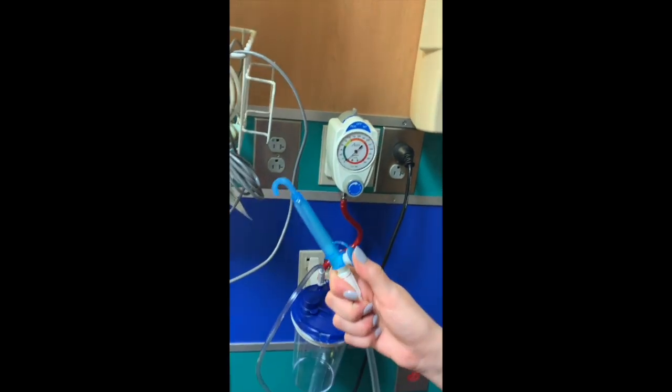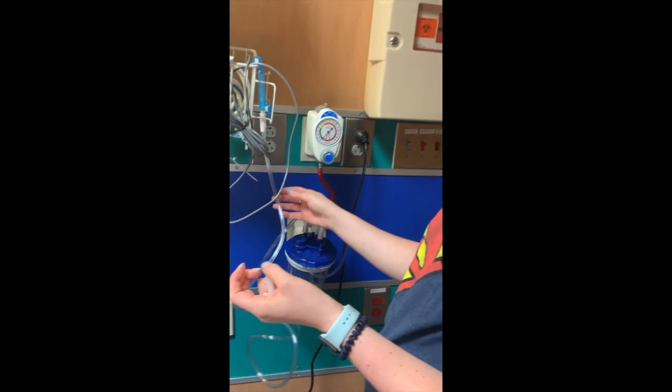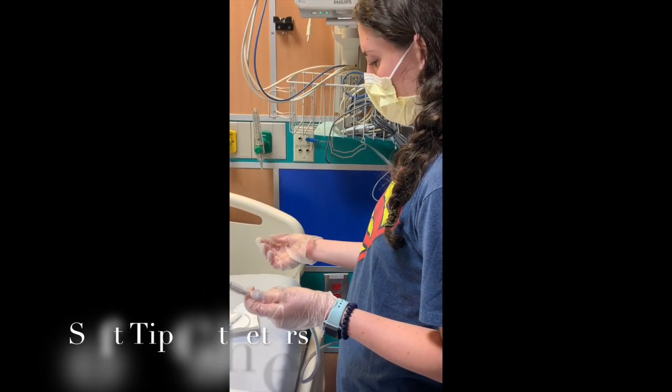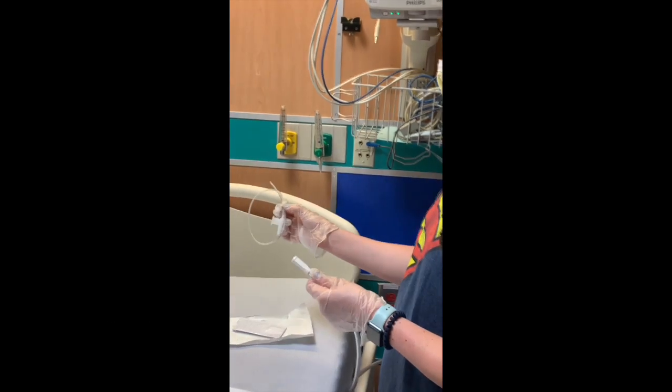The other type of suction that we have is suction using a catheter. This can be used for deep suctioning, and I'll show those catheters later on. Okay, so this is the last type of suction I was telling you guys about, and it is deeper suction.